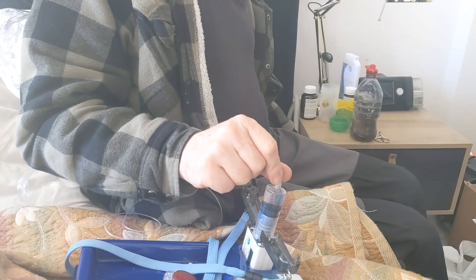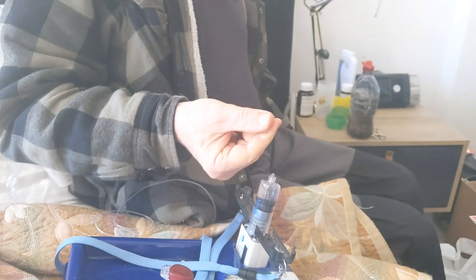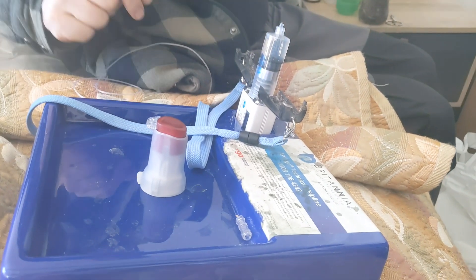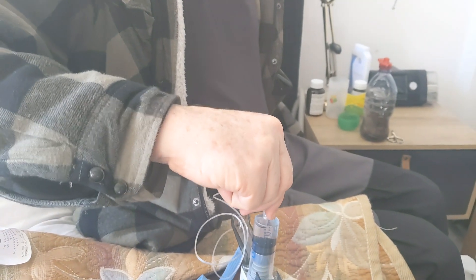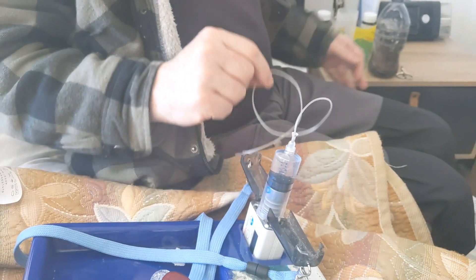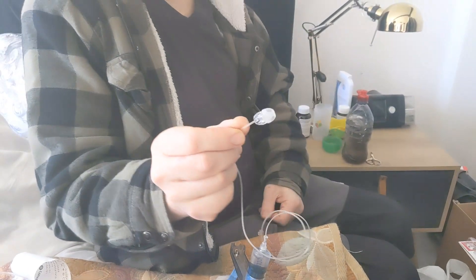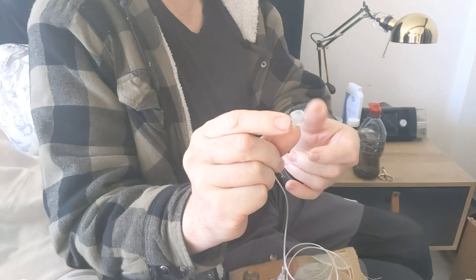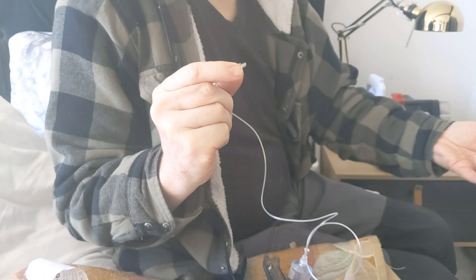Before I can do that, we look at the top of the syringe and have to undo it — we turn it and release it. Then we look for the connector part; this goes into the top. We turn and squeeze — that's now holding it firmly. There's one more thing: we squeeze this part and that goes in the trash.